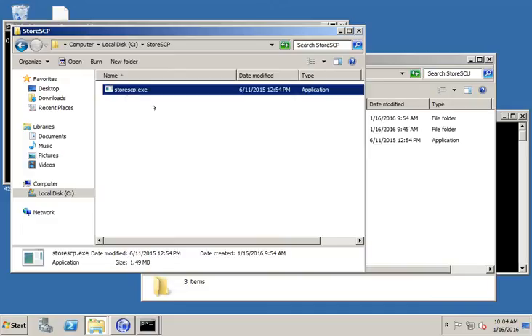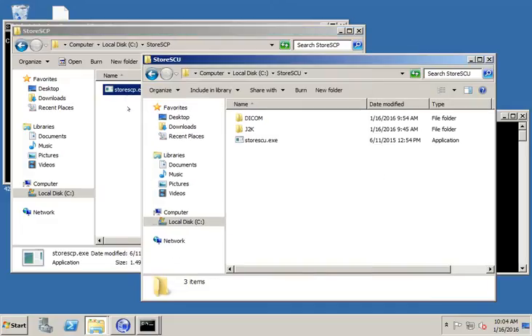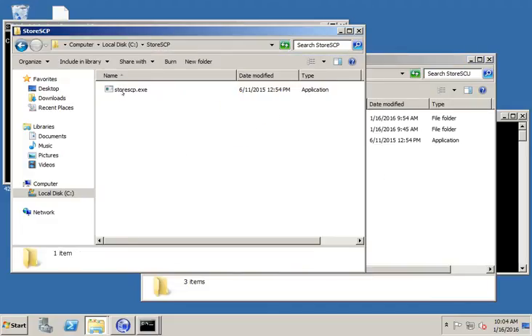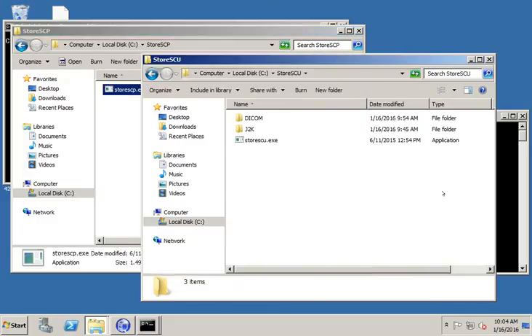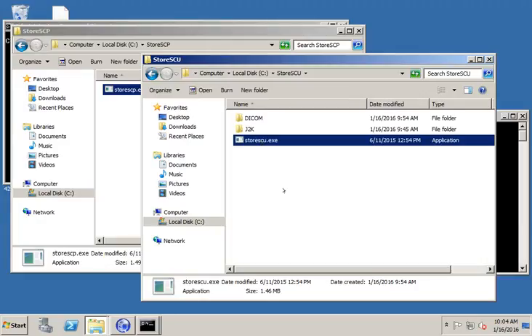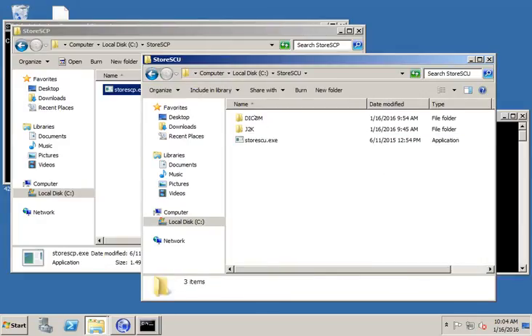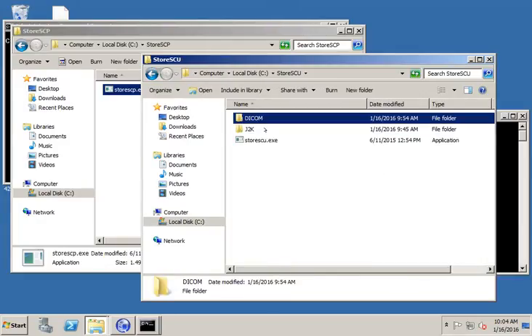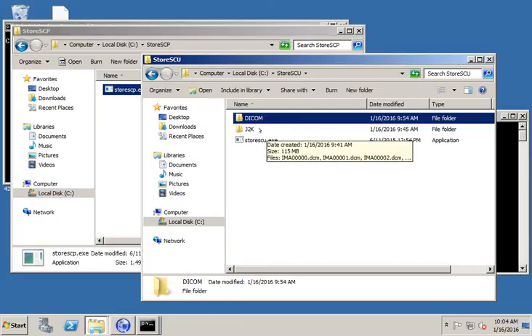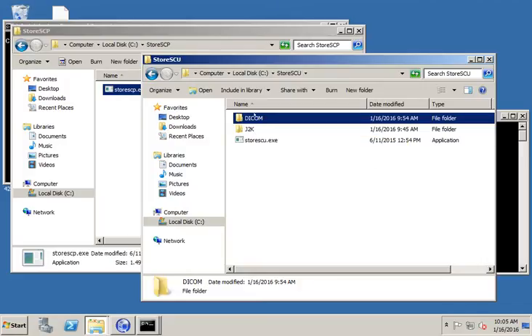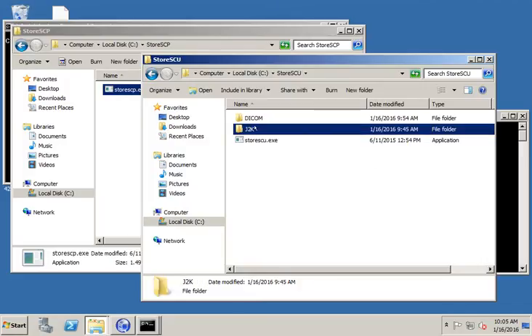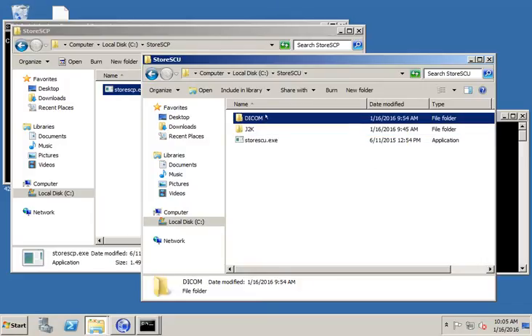What we're going to do with these two tools is I'm going to set up my StoreSCP to be a DICOM listener for receiving DICOM, and then StoreSCU is going to send DICOM files to StoreSCP. In addition, I need some DICOM files to experiment with. So I just grabbed a few anonymized DICOM files.